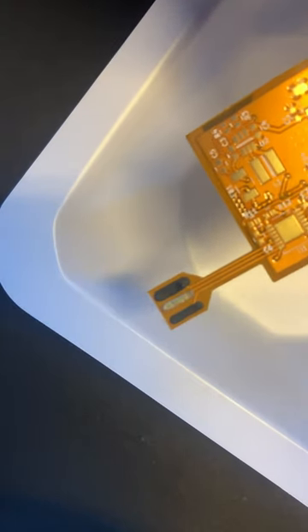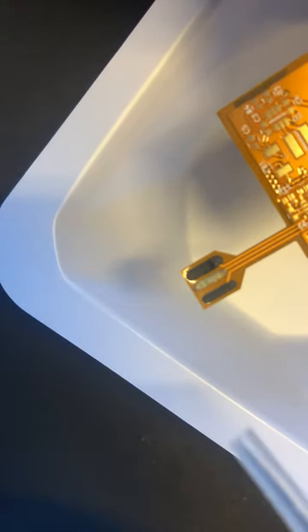So the ECFlex comes in two modes. You can either have the integrated electrode printed onto the flex, and we can also attach a single-use sensor on a connector that's typically mounted back here.